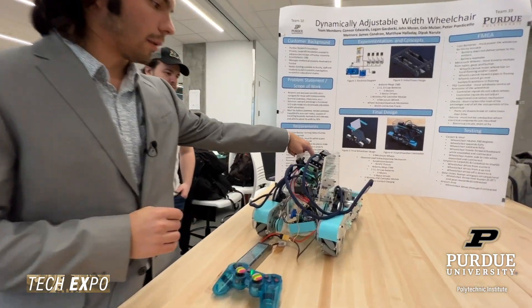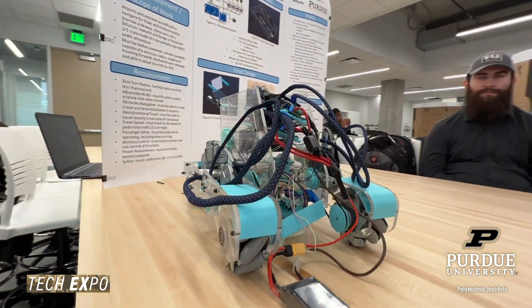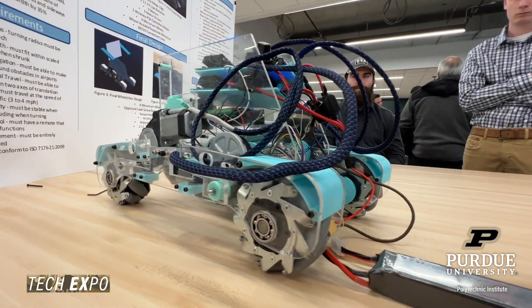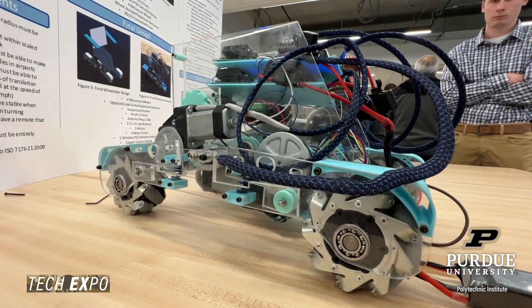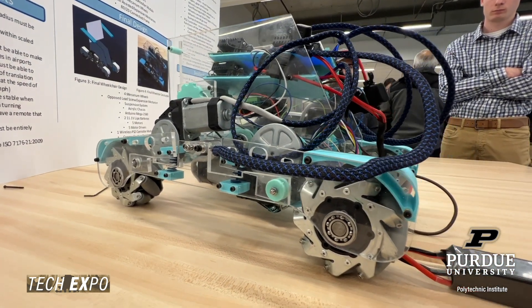With the motor we had, it didn't have enough low-end torque. One of the issues we ran into, especially on the carpet, was that expanding and contracting the mechanism wouldn't exert enough torque to work reliably.